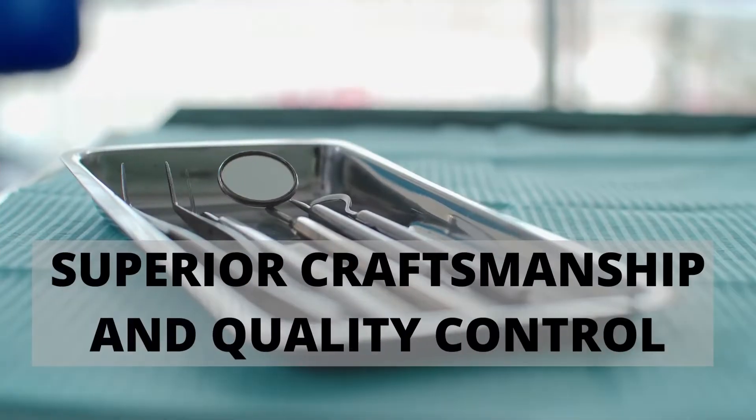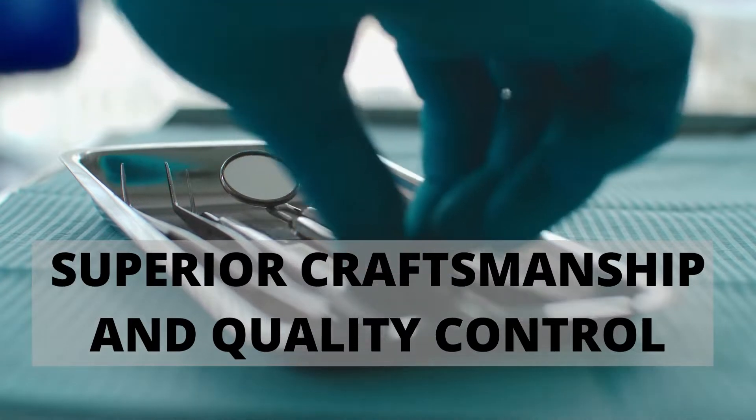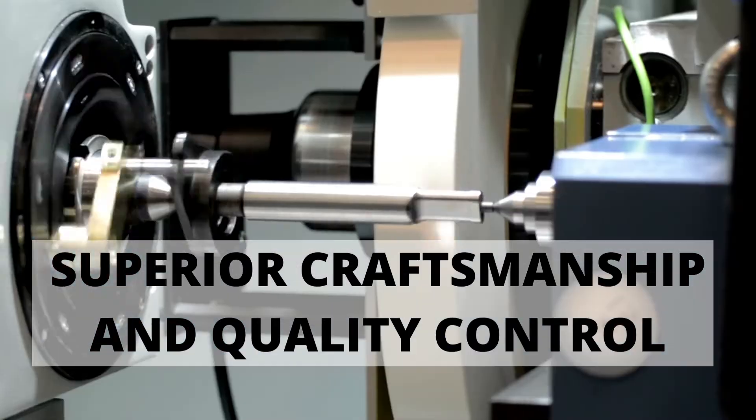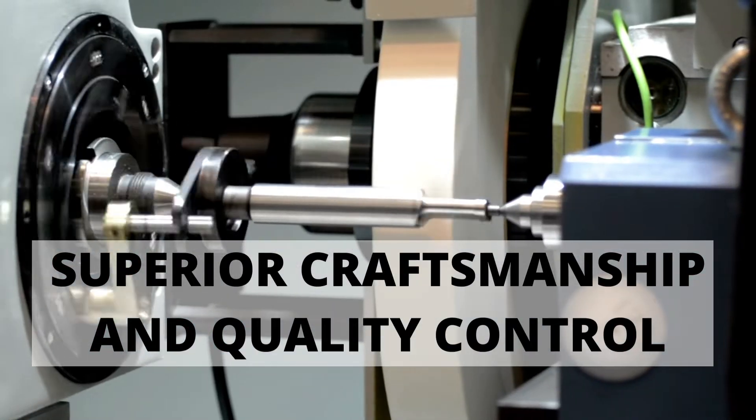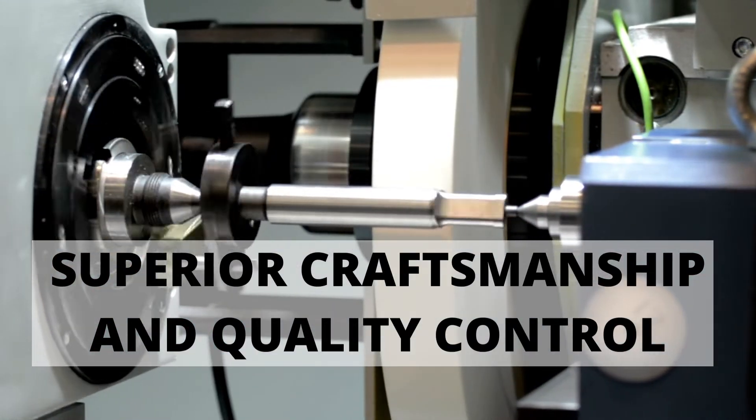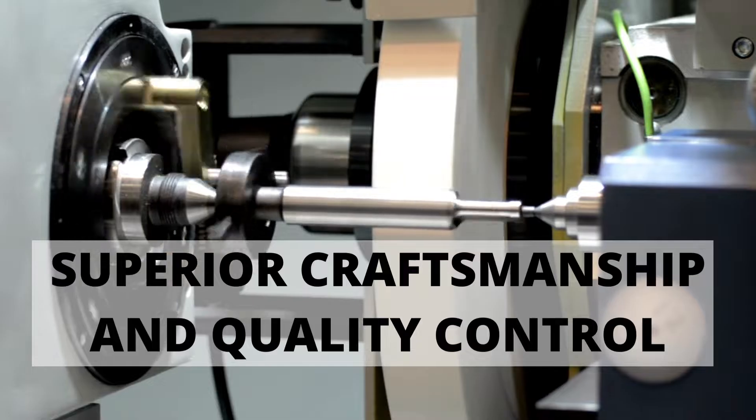These are high-quality instruments made from surgical-grade stainless steel and handcrafted by highly trained instrument makers. The instruments are surface-treated to give them a matte finish.